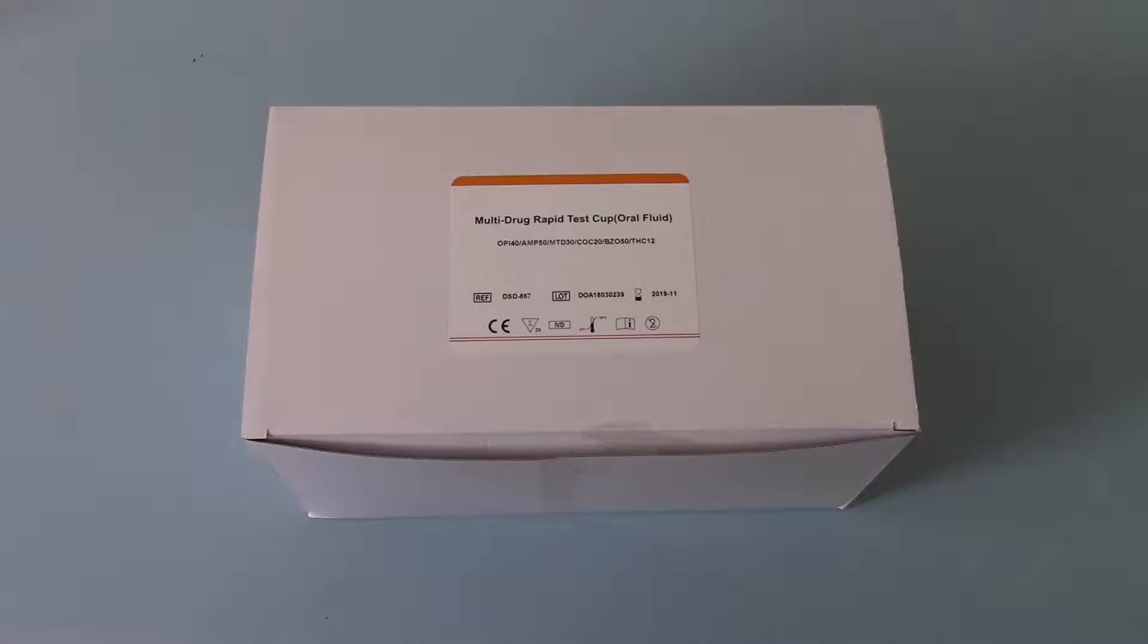Welcome to this product demonstration video for the AllTest DSD867 line of products. These are saliva drug tests. We've got the box carton shown in front of you for one of these variants.